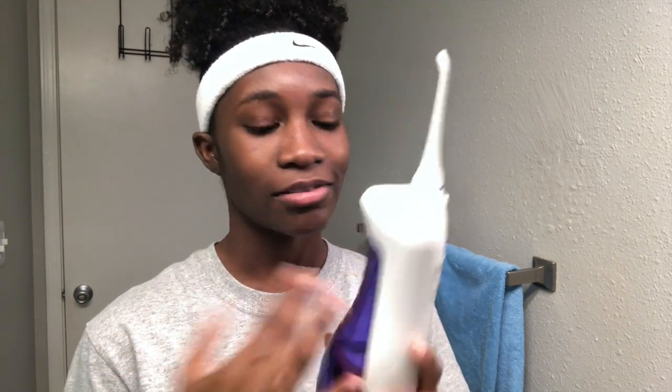My shirt got wet! I had french toast and pancakes for breakfast this morning, so you already know. The only thing about this one is that the water runs out kind of fast, but it's okay — just gotta refill it. I'll go for the top.